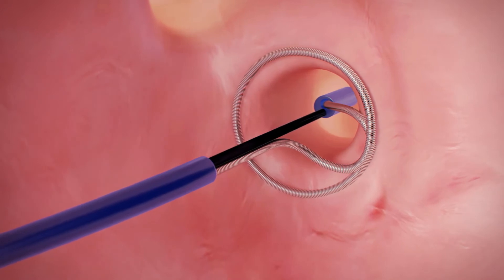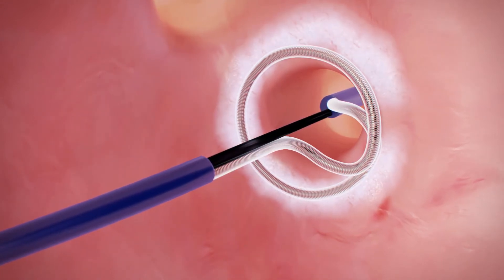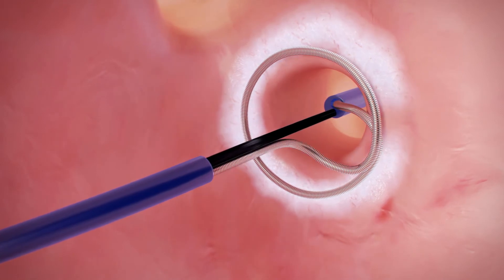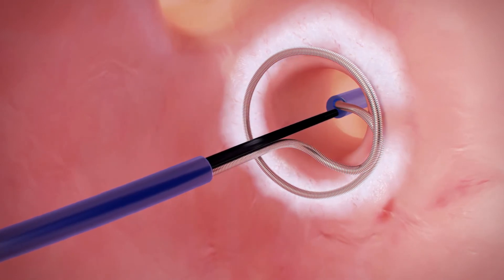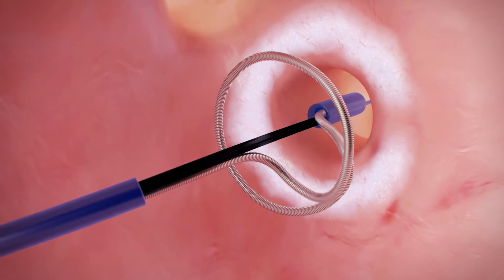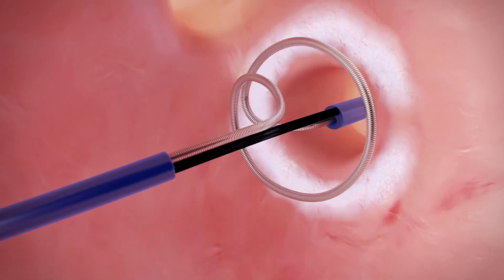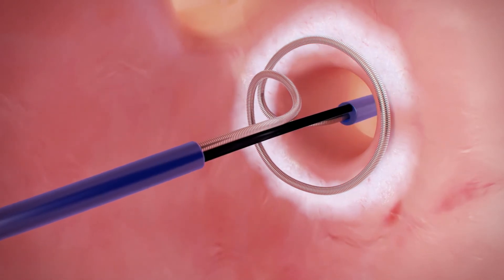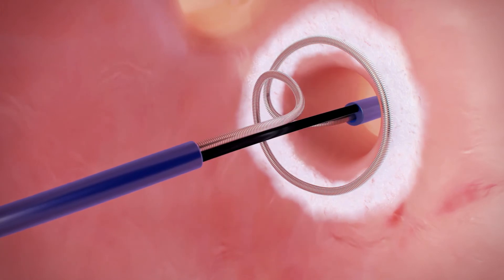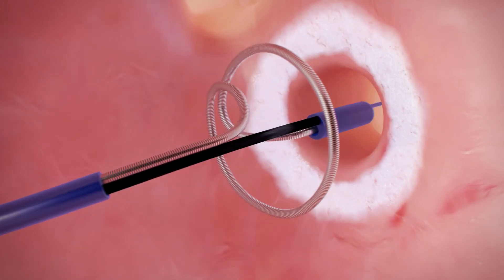The catheter freezes immediately, creating a circular lesion. Within only a few seconds, the system is ready to be repositioned and another cryoablation can be performed. A continuous transmural lesion is created.